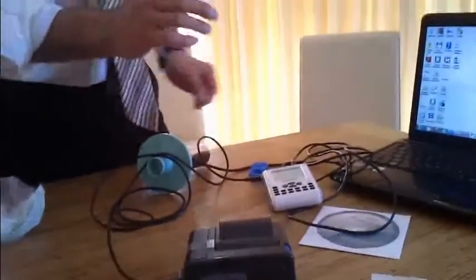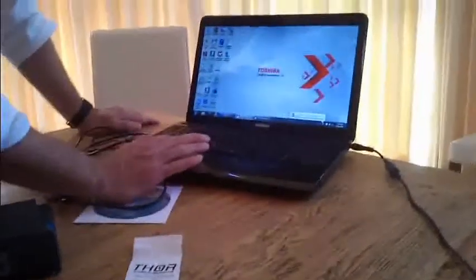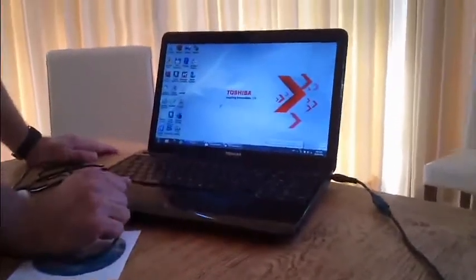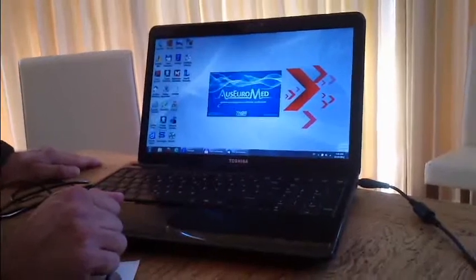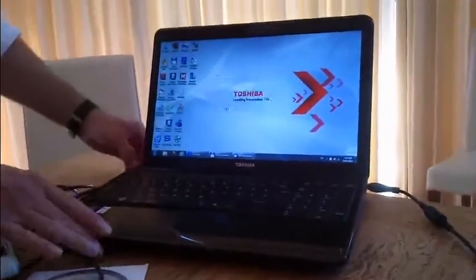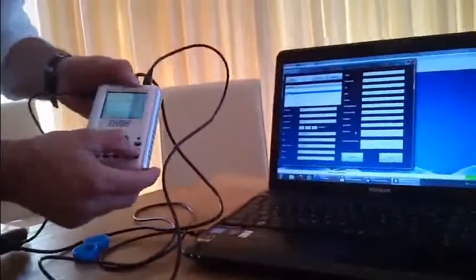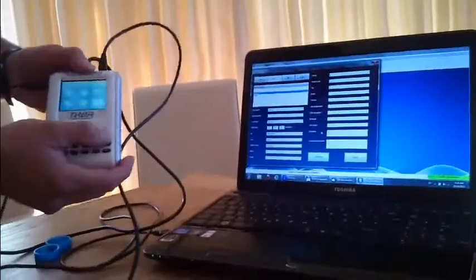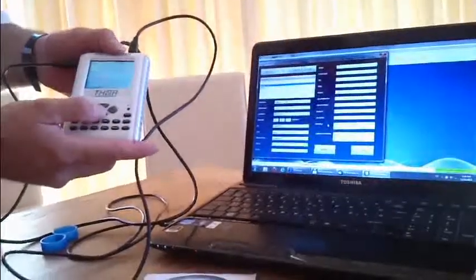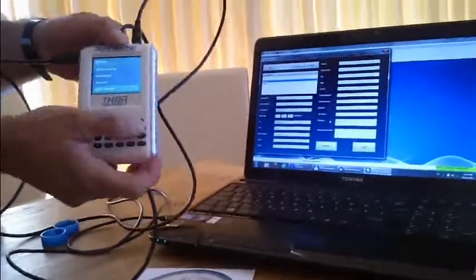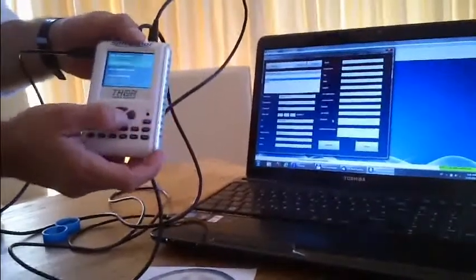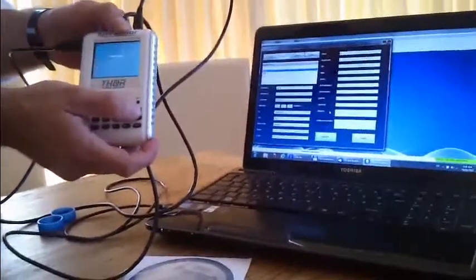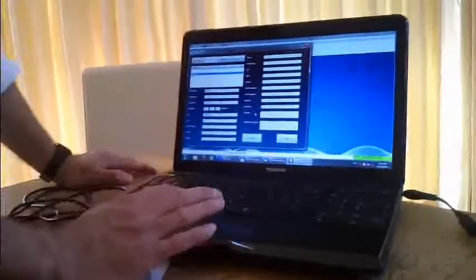Now, the computer software. You can start by launching the spirometry software. This is the Australian edition of the software. If you select it, the cable is of course already connected to the computer because it's also charging. If you exit from the main menu and go to settings, you can do the USB connection. You can select USB connection and say send spirometry data. I'm selecting send spirometry data now. It says sending data.